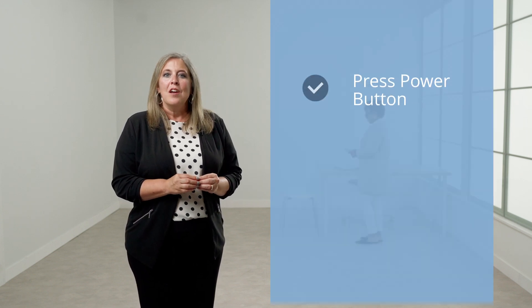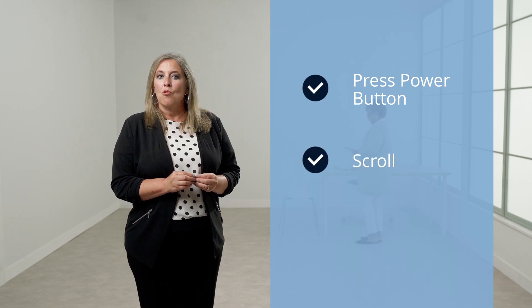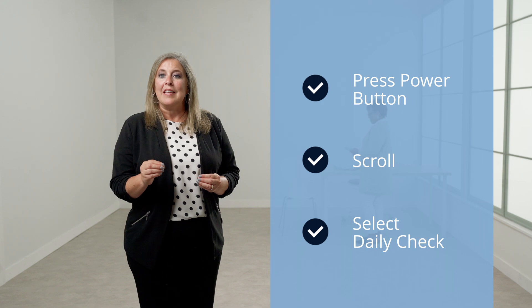It is recommended that before testing, a daily check is performed. To perform a daily check, turn the Allegro power on and use the navigation buttons to scroll to and select Daily Check.